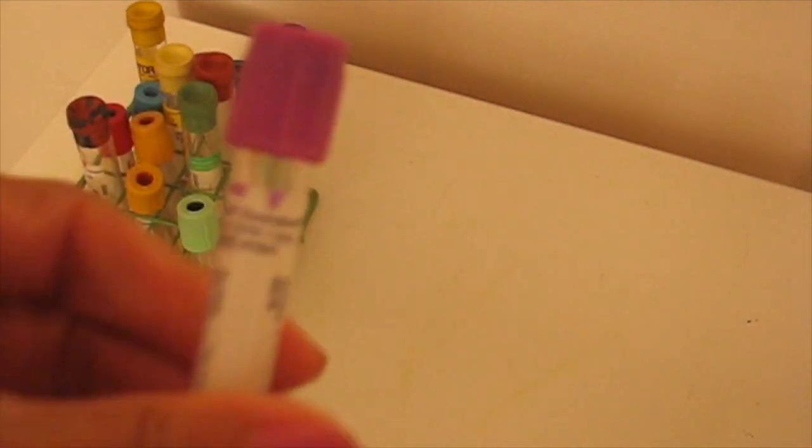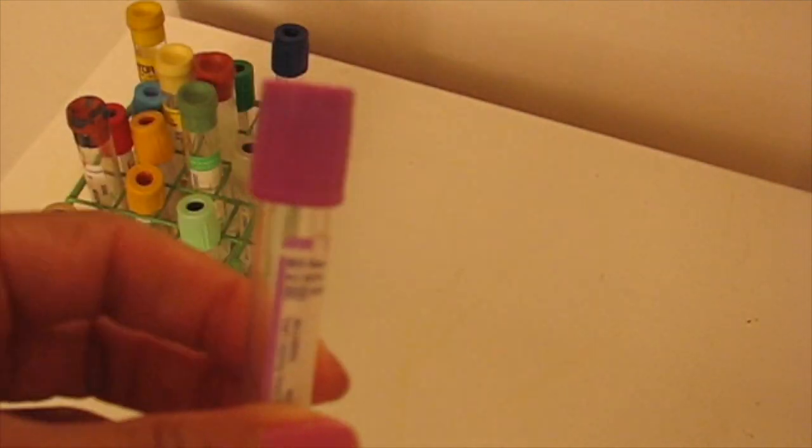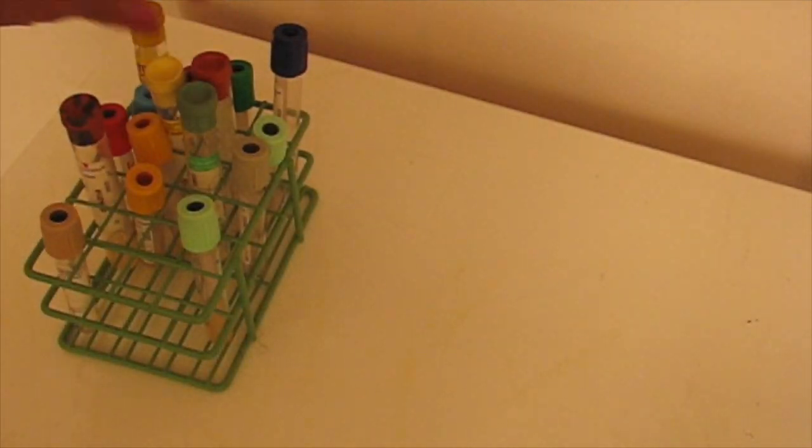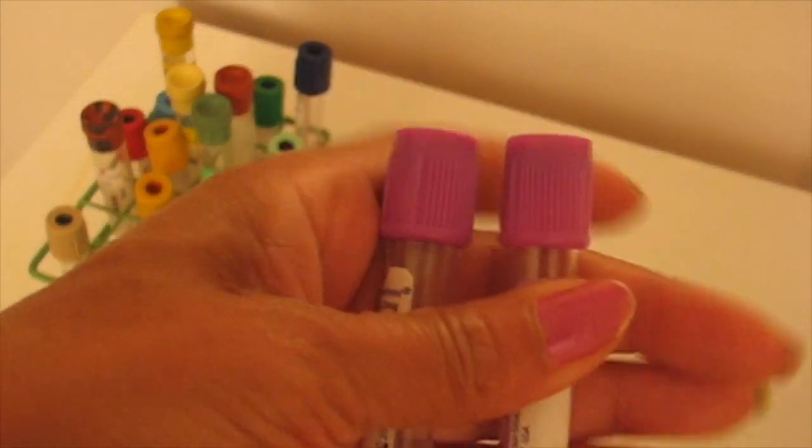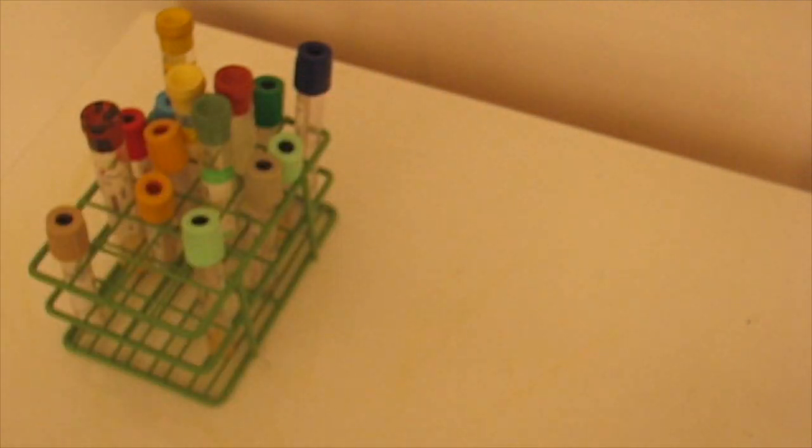Back to the lavender top. You're going to draw a lavender top for your CBC, and if your facility needs the A1C to be collected in a second lavender top, you will be collecting two lavender tops - one for your CBC and one for your A1C, but never a tan top for either of those tests.